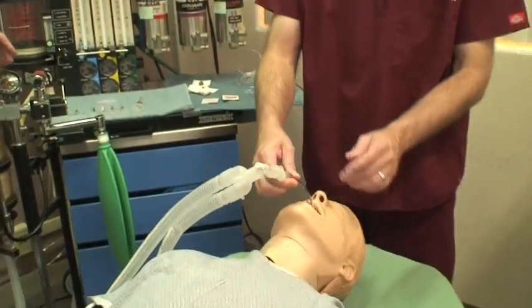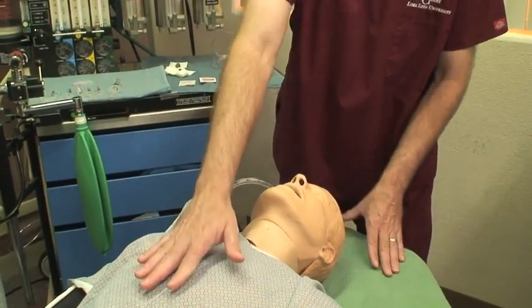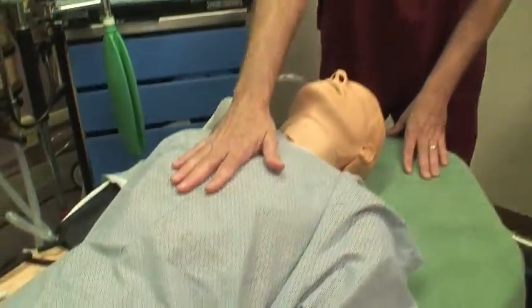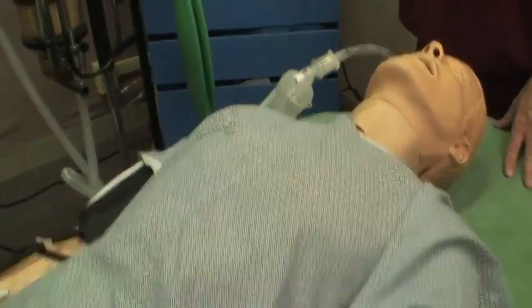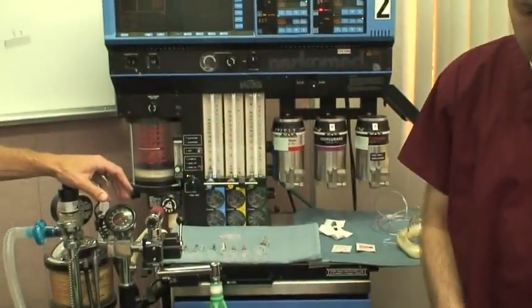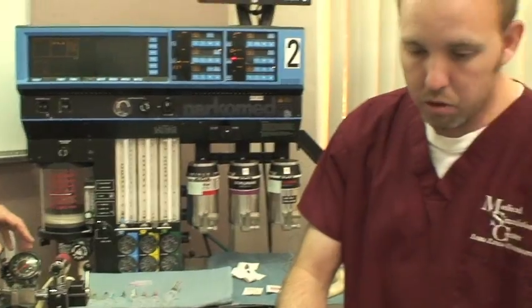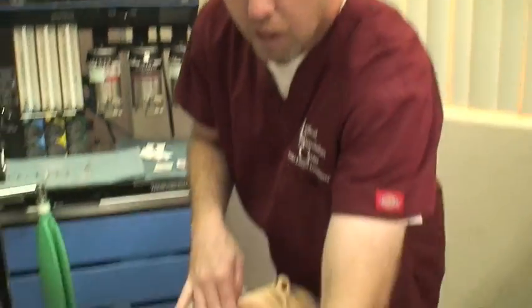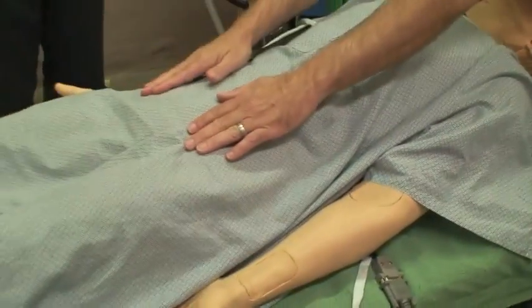You can see that he's intubated, meaning we have a tube going down his throat into his lungs, and you can see chest rise and fall based on the machine that's breathing for him. Sam also has carotid pulses, radial pulses, and femoral pulses.